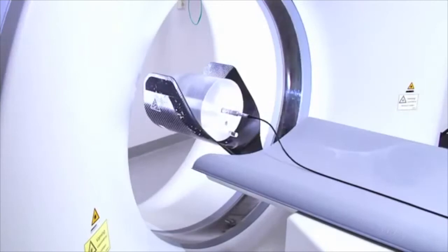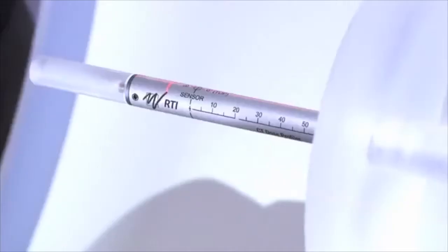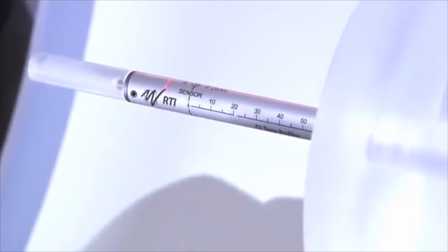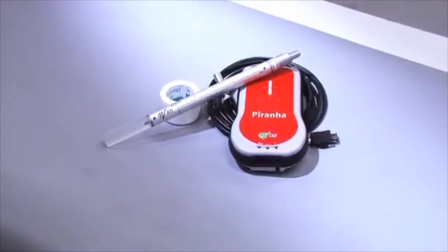This film will guide you through how to carry out a measurement in a CT dose index phantom and free in-air in a CT, using the CT dose profiler probe, the Piranha, and the Ocean software.